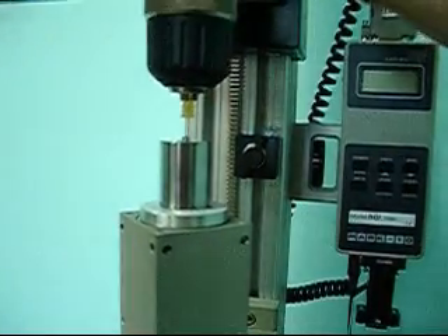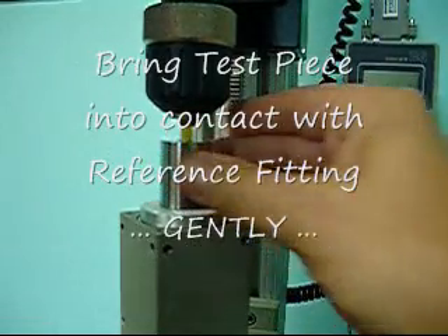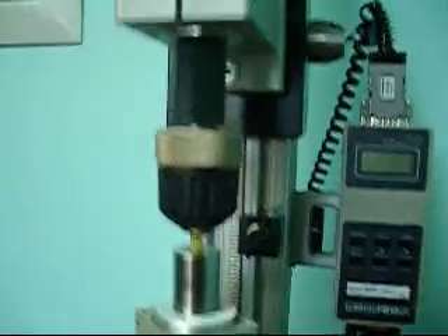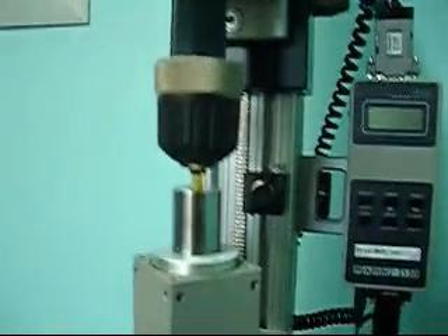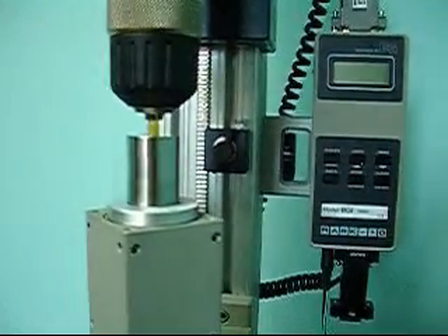What I'm going to do is bring this down by hand until it is set on top of the reference fitting. The two are together. You will notice that once it is together, there is an amount of space here — about half an inch. It doesn't need a lot; it doesn't compress much. You will figure out exactly how much you need as you do it.